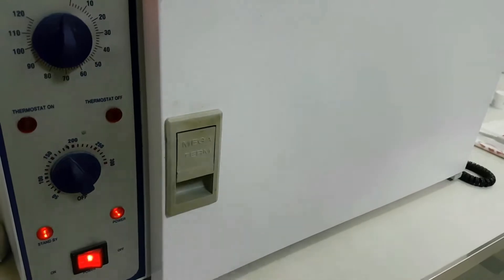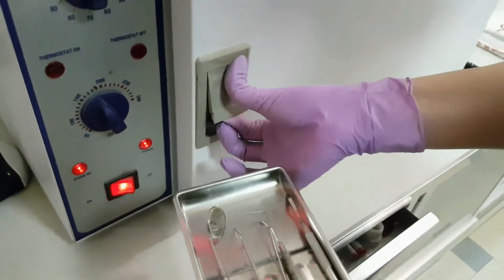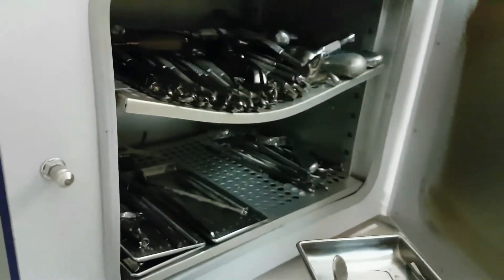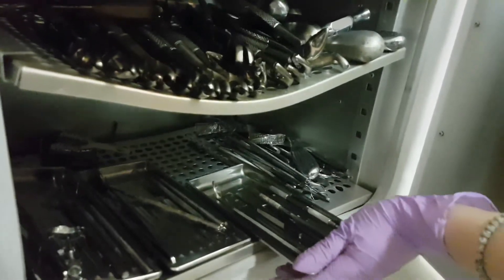We use clean gloves to open up the machine. And the dry instruments are put in the machine. All of the instruments that are made of metal can be sterilized.